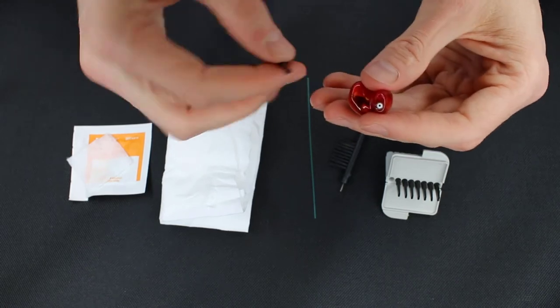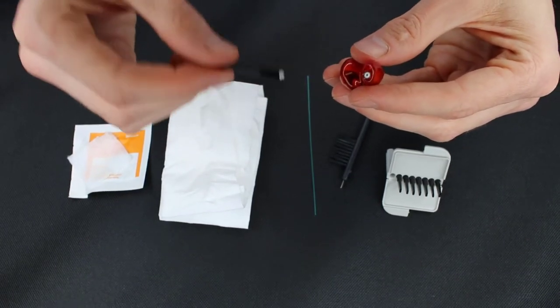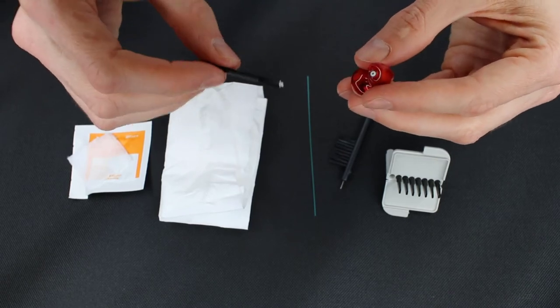The majority of time that a hearing aid is not working, either this wax trap is clogged with earwax, or the battery needs to be changed.